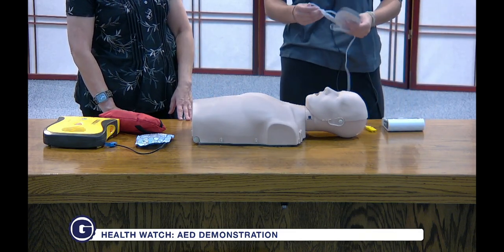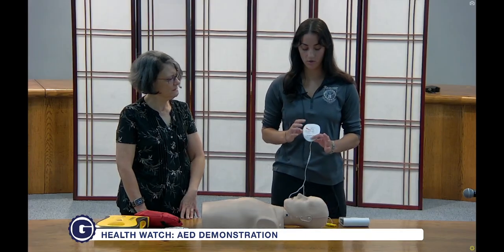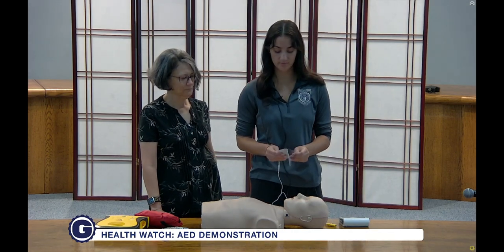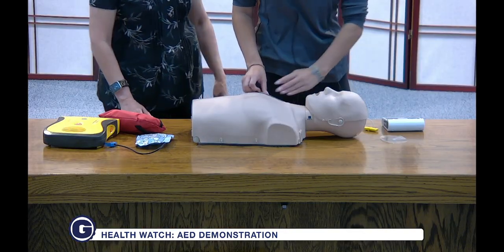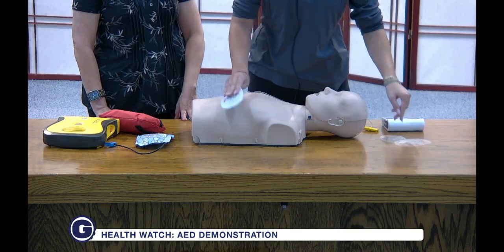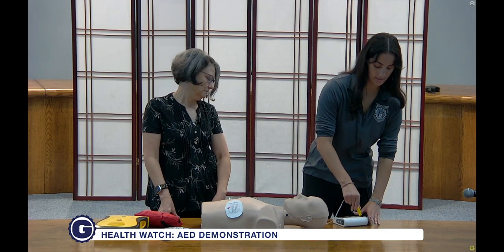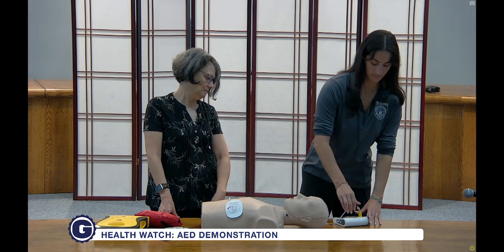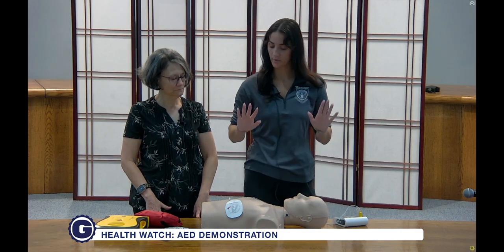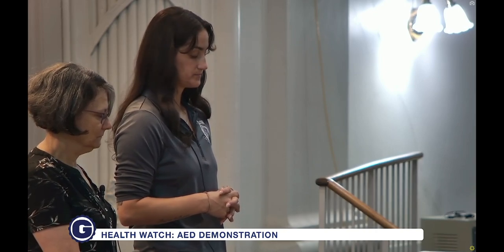Apply pads to patient's bare chest. How do I know where to put the pads? You can look right on these pads — there are going to be pictures showing where to put them. Apply pads. Plug in connector. So we're applying our pads and plugging in our connector so we can analyze the heart rhythm. Analyzing heart rhythm. Do not touch the patient — we want to stay away from the patient so that we can analyze for shock. Shock advised.